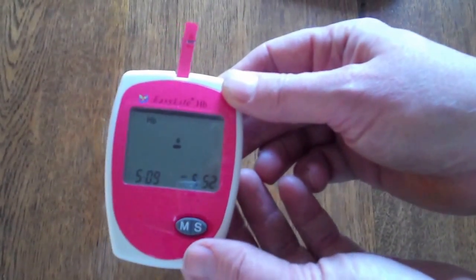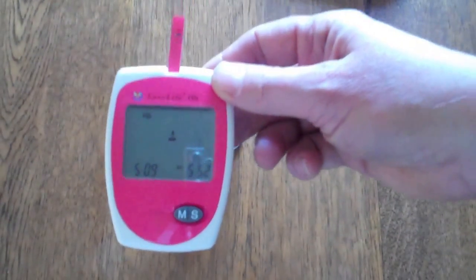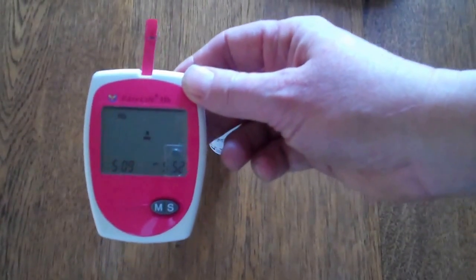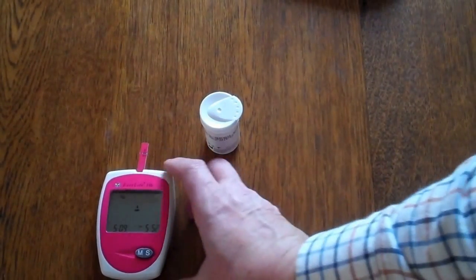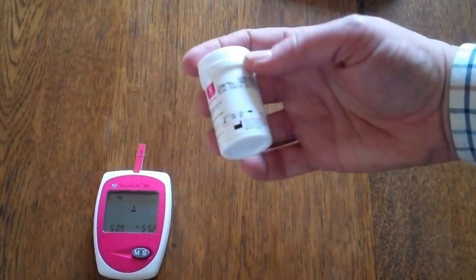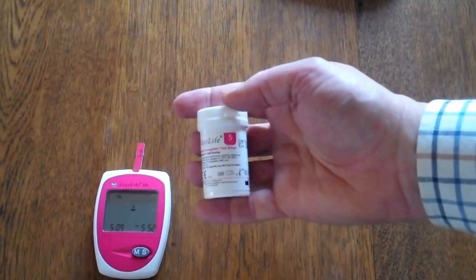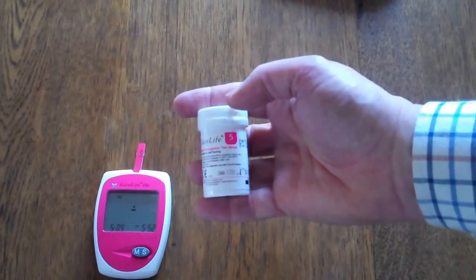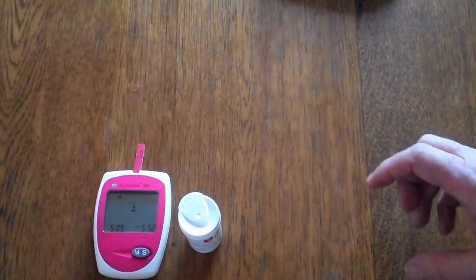It's extremely easy and quick to operate. The meter costs between £39 and £45 to purchase, and a pack of 25 replacement test strips costs approximately £20 — making it certainly under a pound per test. It's an extremely accurate and easy-to-use meter system.